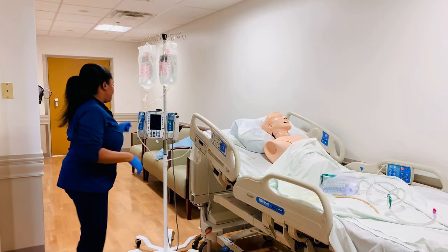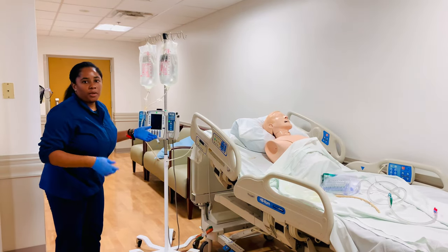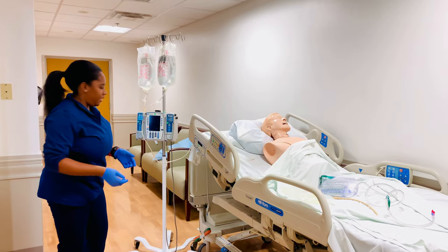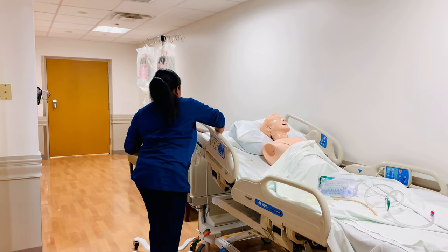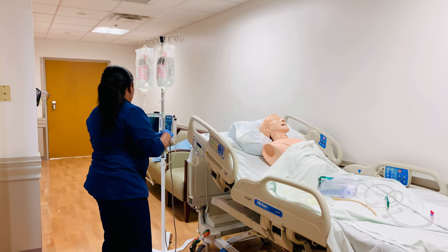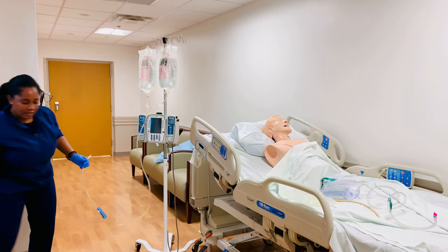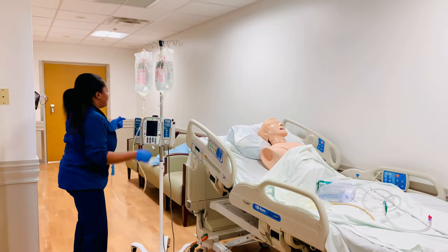The great thing with the CBI is that I don't have to connect it to a pump — we're pretty much just going to use the pole, because that's really all we need. Once this is all set up, you want to make sure that we're priming the line.